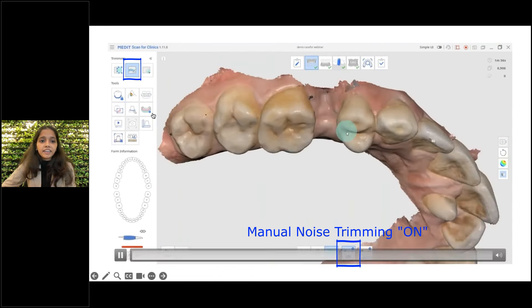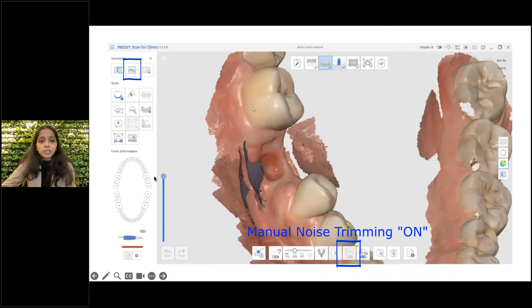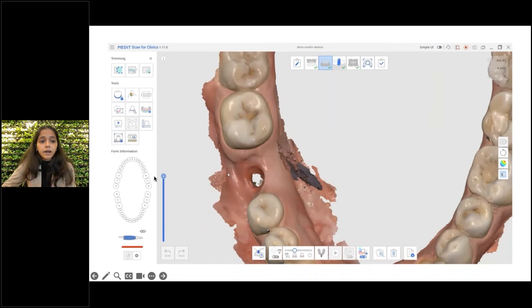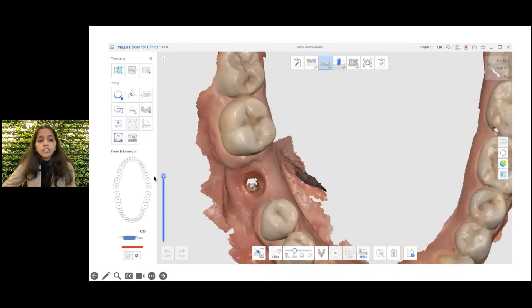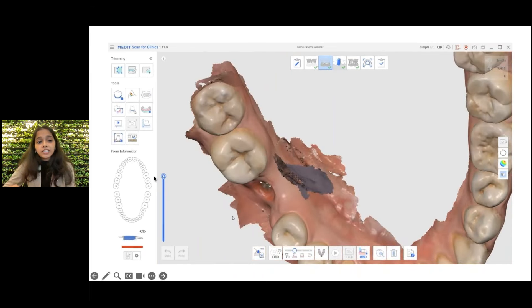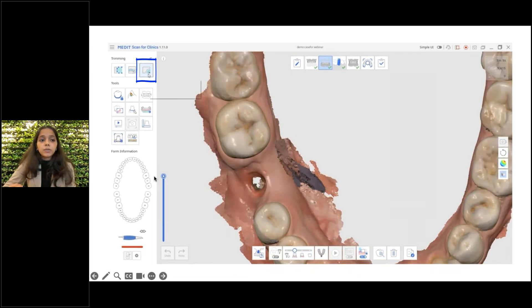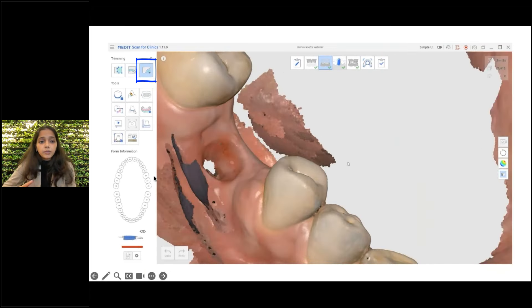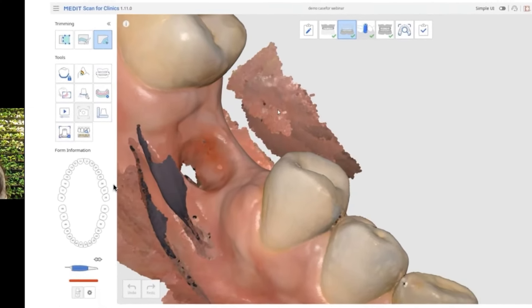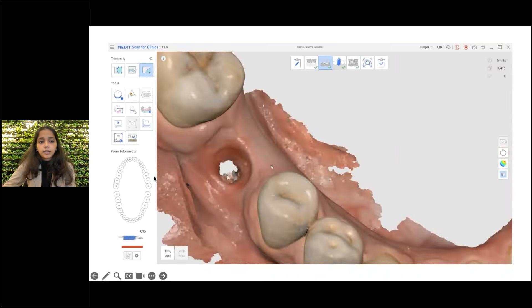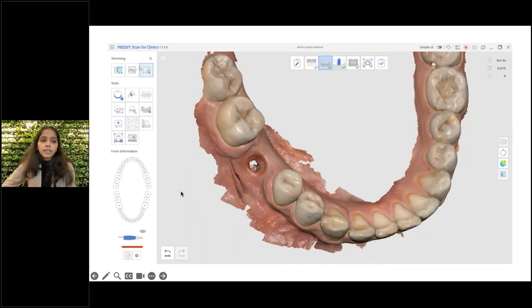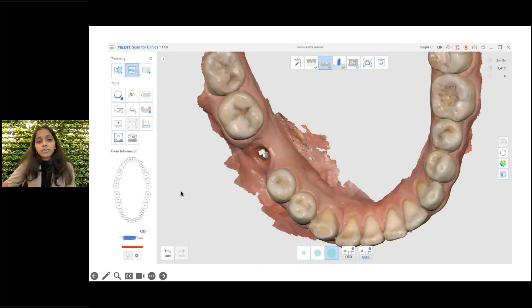Clean and clear — this is how we can use the brush tool to eliminate artifacts. Now, if you have any floating artifact in your scan which is not attached to your primary scan, in such instances you can use the quick trimming tool. By selecting the quick trimming tool, you can click the artifact and it disappears. This is the beauty of using the editing tools — it is much quicker and easier, and you do not have to face the inconvenience of calling the patient back.